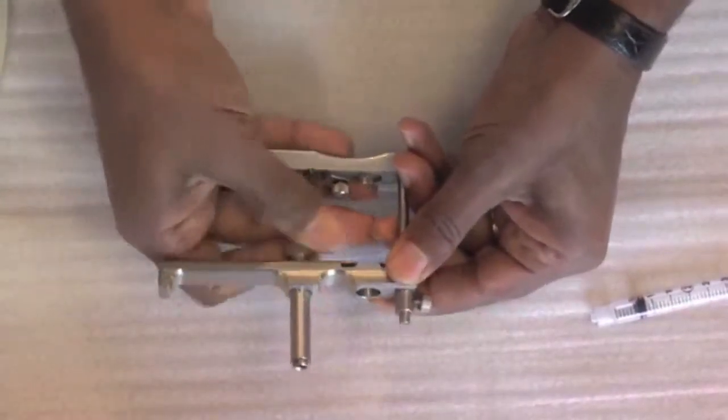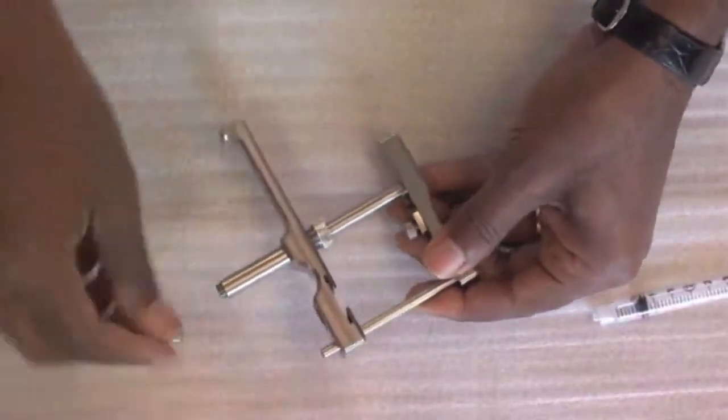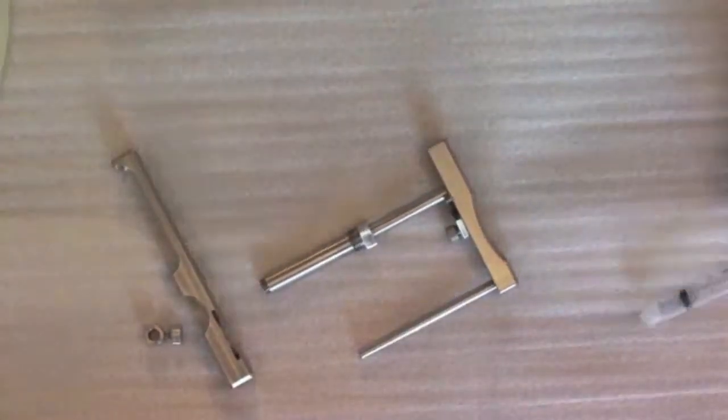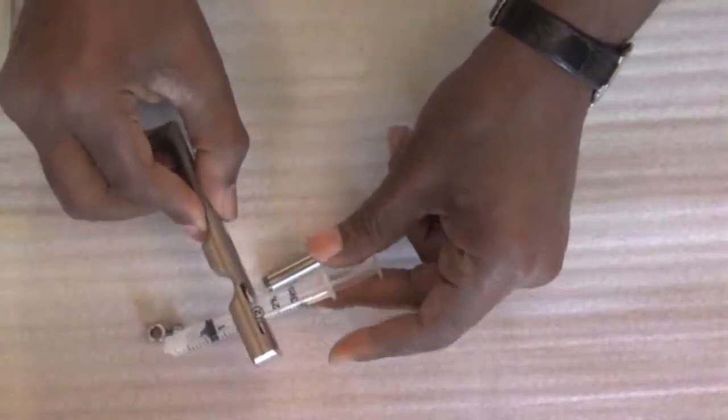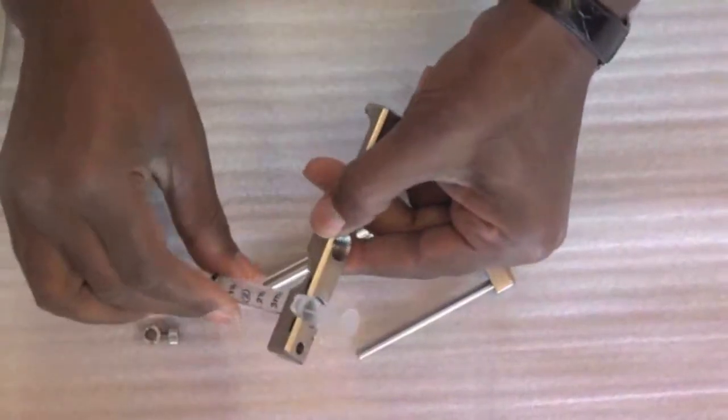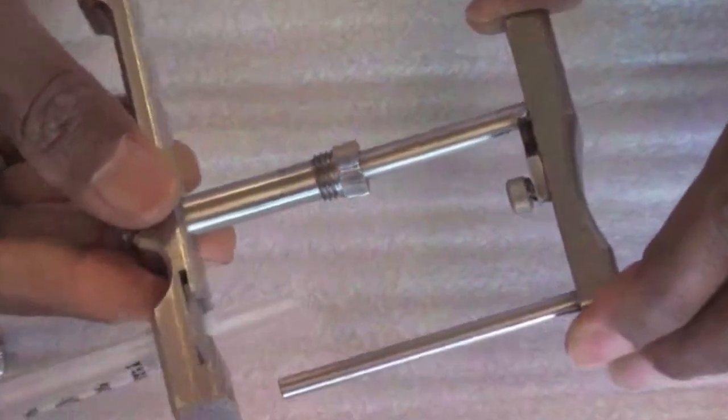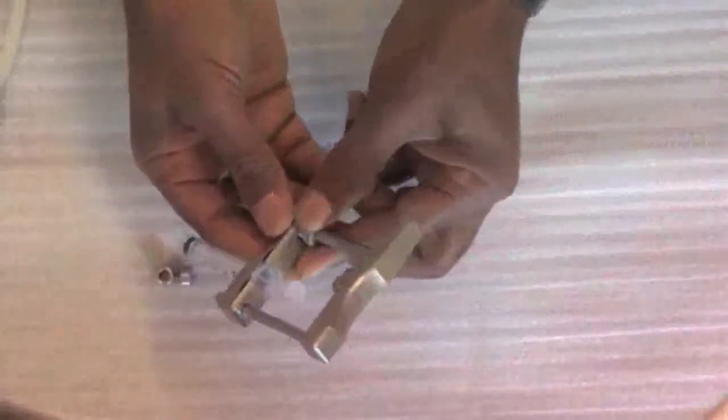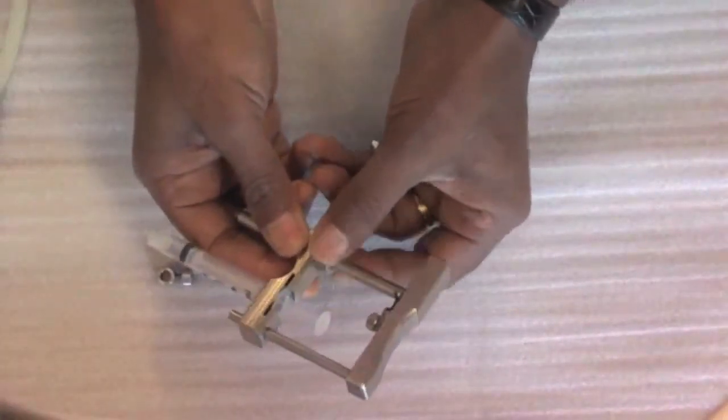First, loosen the guide spring locking nut and then remove the dose control ring from the guide pin. Insert a 3cc BD syringe into the barrel flange lock socket and twist it into place. Reinsert the spring guide and the guide pin, and then lock the spring guide in place with the locking nut.